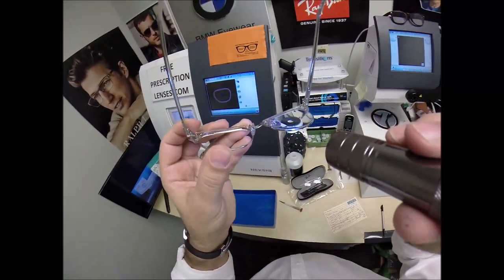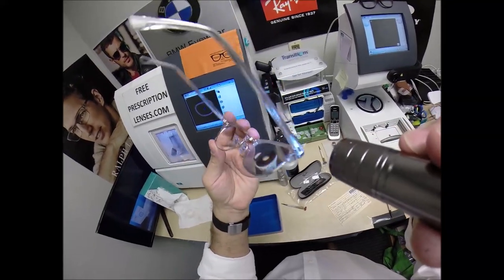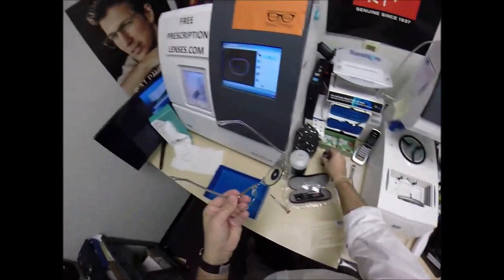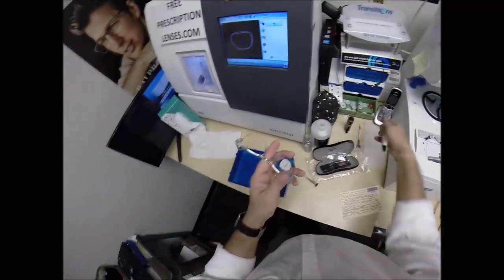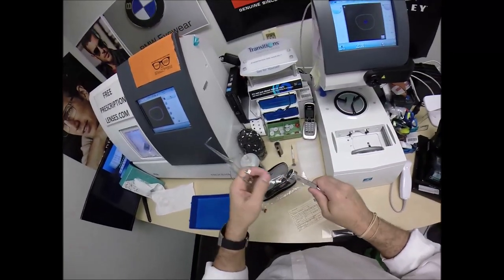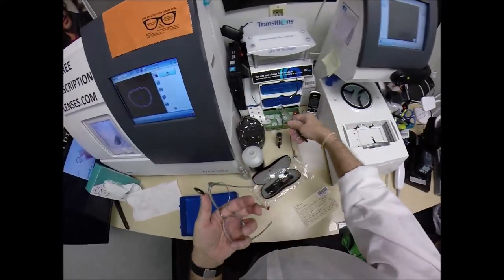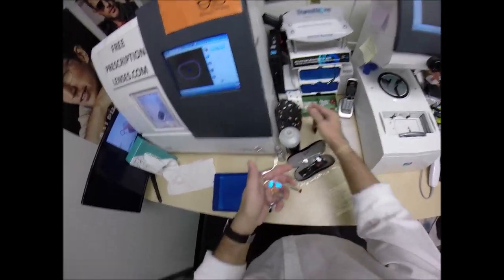You have a combined value of plus five power in these lenses and no edge thickness. These are strong magnifying lenses, and you can't see it protruding from the frame. This is going to turn out really well. Pull the sticker away — that's no longer needed. Use my hand-approved drying method, throw that back in there, add to my sticker collection.